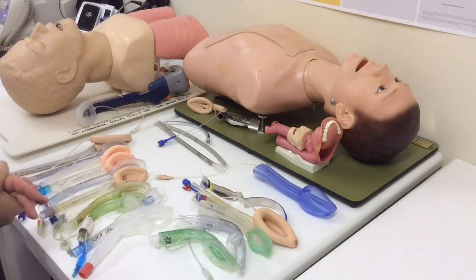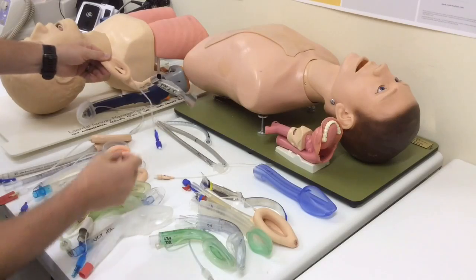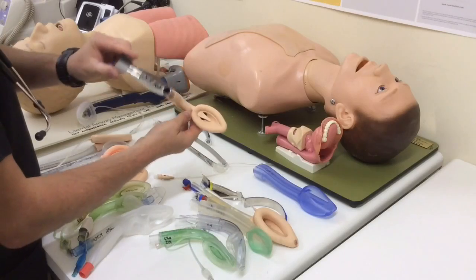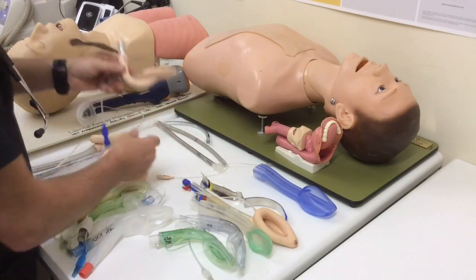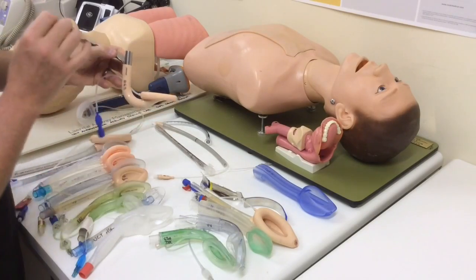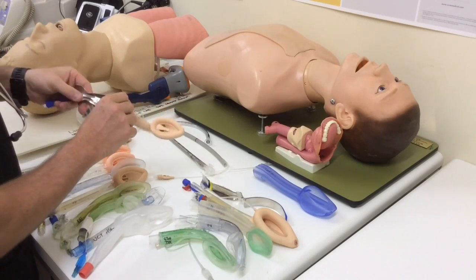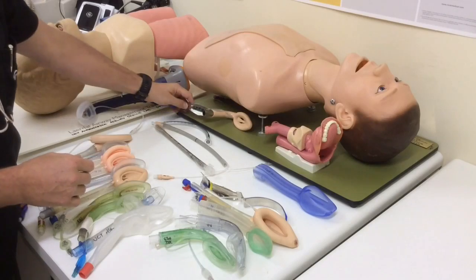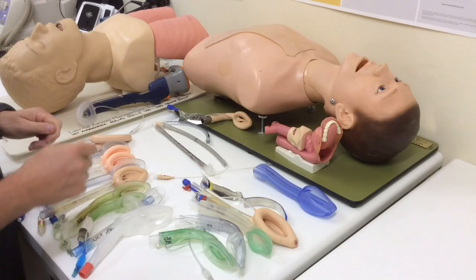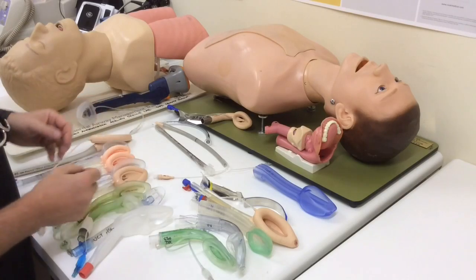Then, just to throw things into the mix, you also get devices which are specifically designed as supraglottics to allow intubation. And perhaps the most classic example thereof is something like the fast track intubating LMA. This is the reusable version of it. You also get a disposable version, and this is specifically designed to direct an endotracheal tube through it and allow intubation of the patient with or without the use of a fibroscope. You have very varying success across all the different devices if you try and do blind intubation. Most devices will allow fiber optic guided intubation with some variations on the theme, and that will be in a later video.